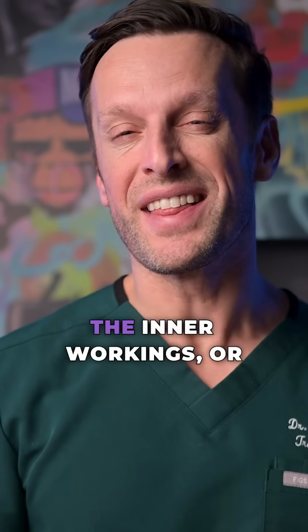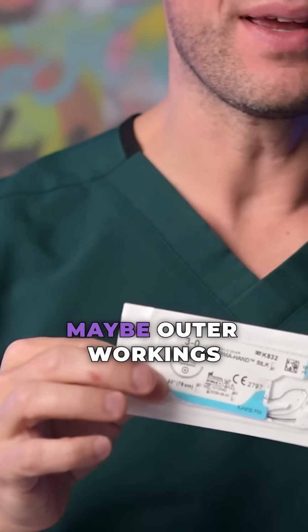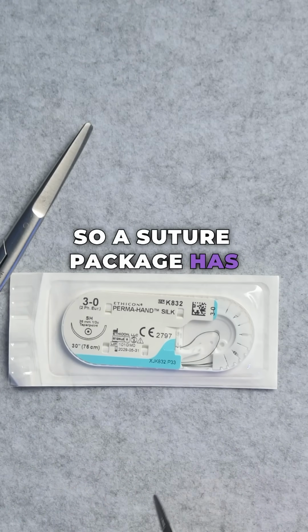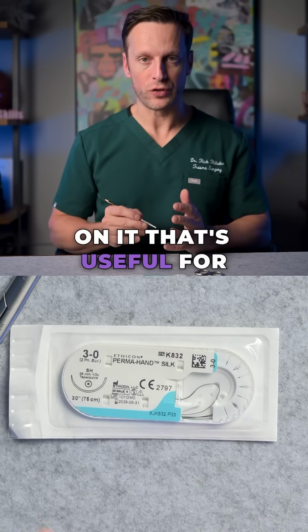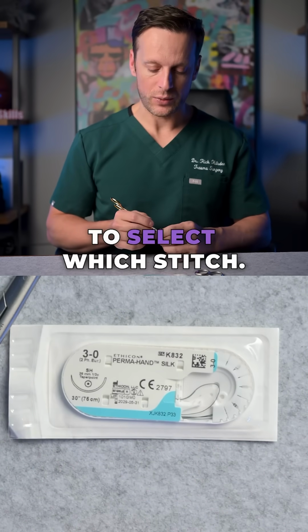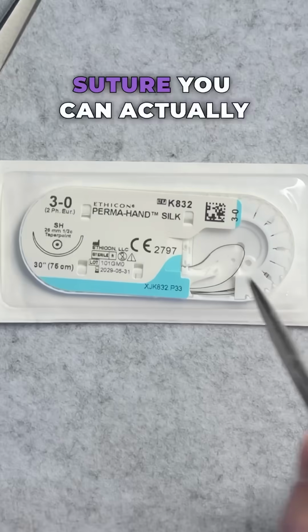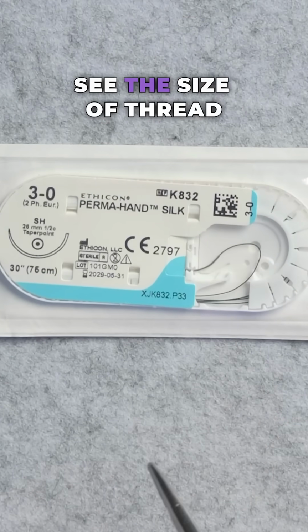Today we're teaching the inner workings, or maybe outer workings, of a suture package. A suture package has a ton of information on it that's useful for you when you're trying to select which stitch. First of all, if you have a non-absorbable suture, you can actually see in the package and see the size of the thread.